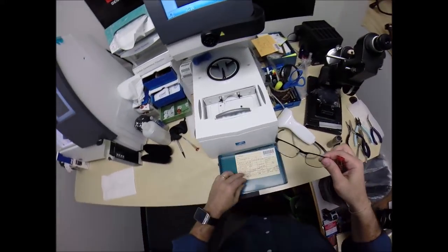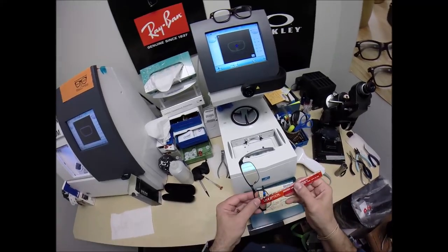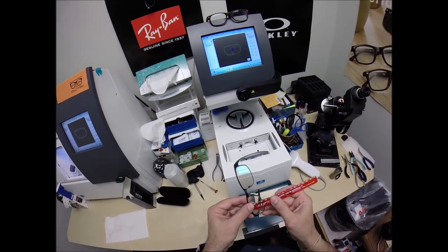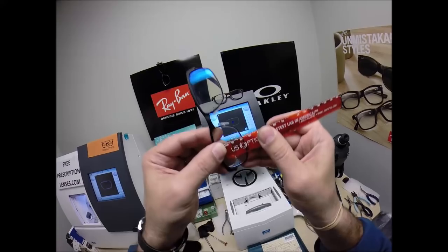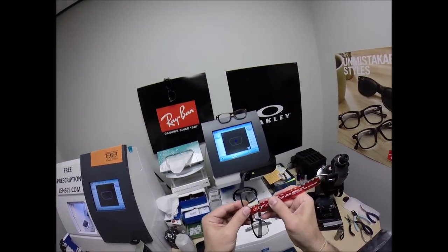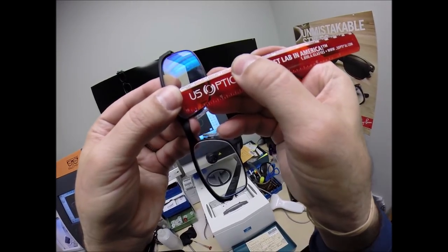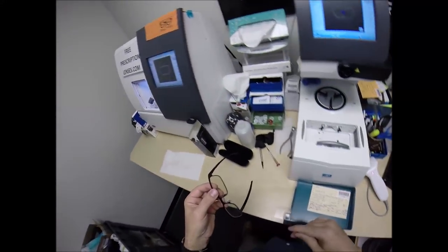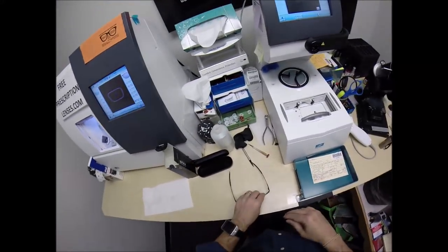I want to check the optical center height where the invisible bifocal rest at 19.5. And then when we hold it up to the bottom of the frame, we're getting 19.5. Can you see that? Man, the kid is good. I could not have done a better job if I'd cut these lenses myself.